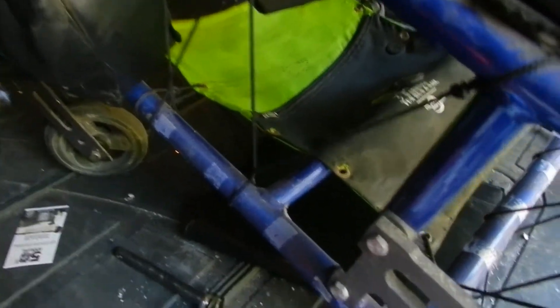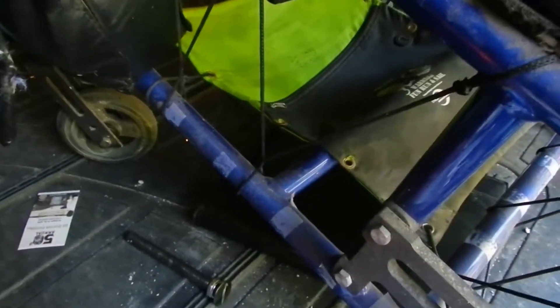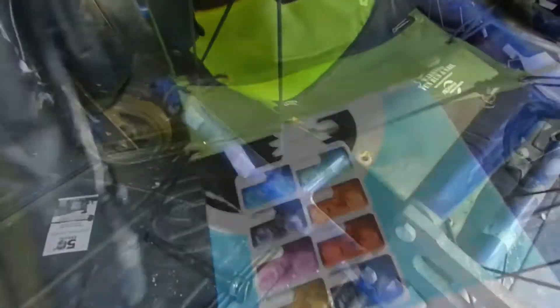So I'm getting ready to change these out after I do some cleaning up, and I want to show you what I'm going to put on. It's going to be even better and blue like the color of my chair. I've got to do some cleaning up while I take it off. So stick around and see what it looks like.